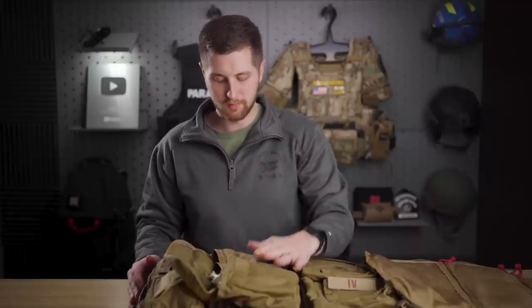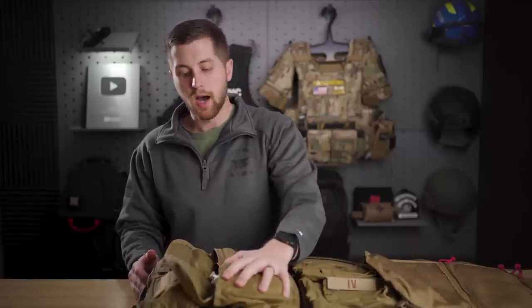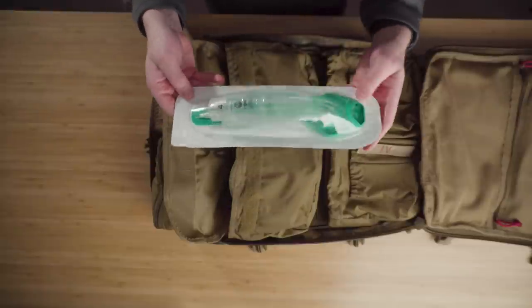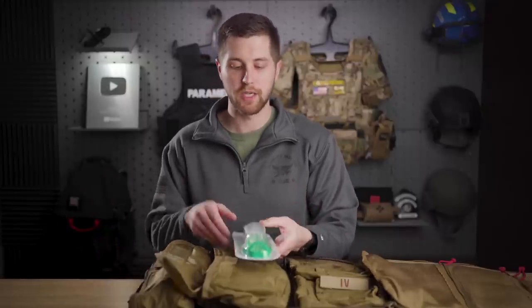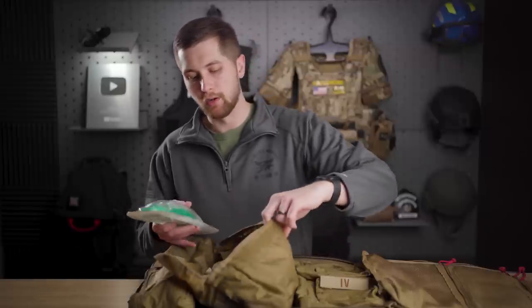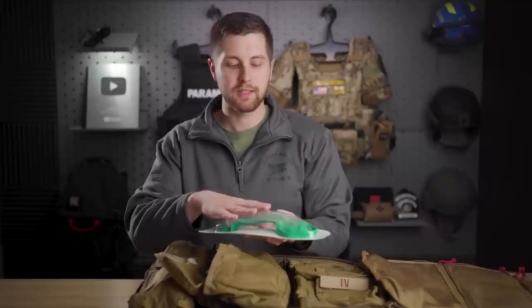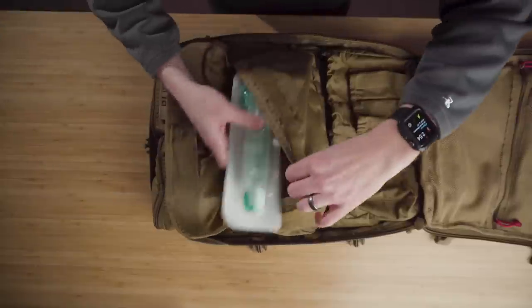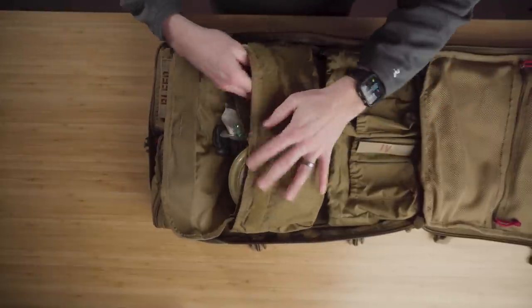I'm not carrying any ET tubes because I'm probably not going to use them, but I will have a supraglottic airway — the iGel. This size will fit pretty much everybody on both SWAT teams we attach to, so I'm only carrying one size because these do not pack down well at all. If your service allows removing things from packaging, you could do that, but we have to keep things in original packaging per our protocols. That covers everything I need for the airway portion.